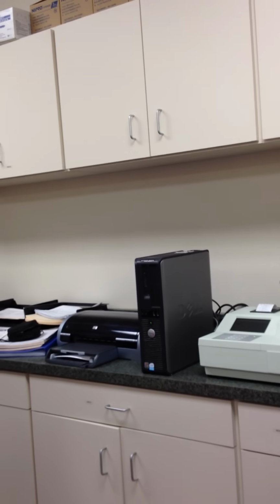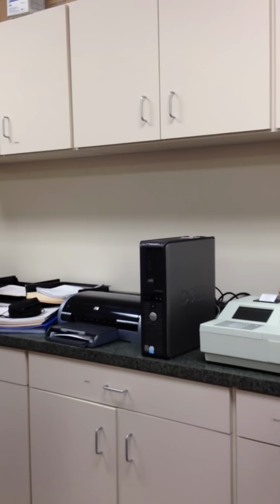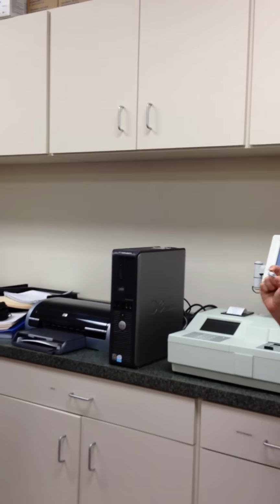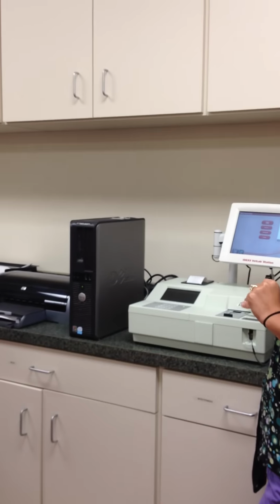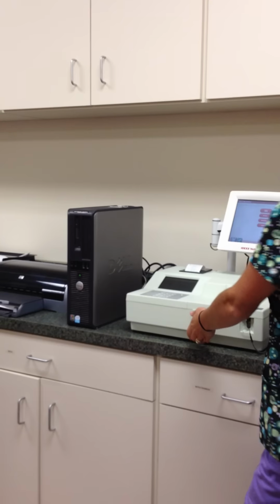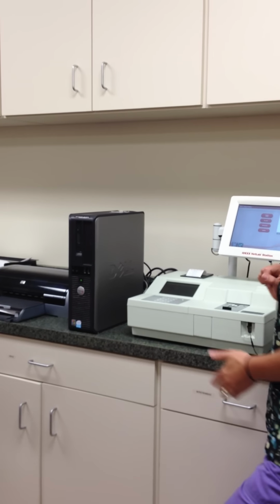And then we're going to stick it in this little box here. There's a little notch here. It can only go in one way. Okay, I repeat, it can only go in one way. So we're going to put it in with the little notch. I'm going to make sure this is empty real quick. Yep. That's your little garbage container there.